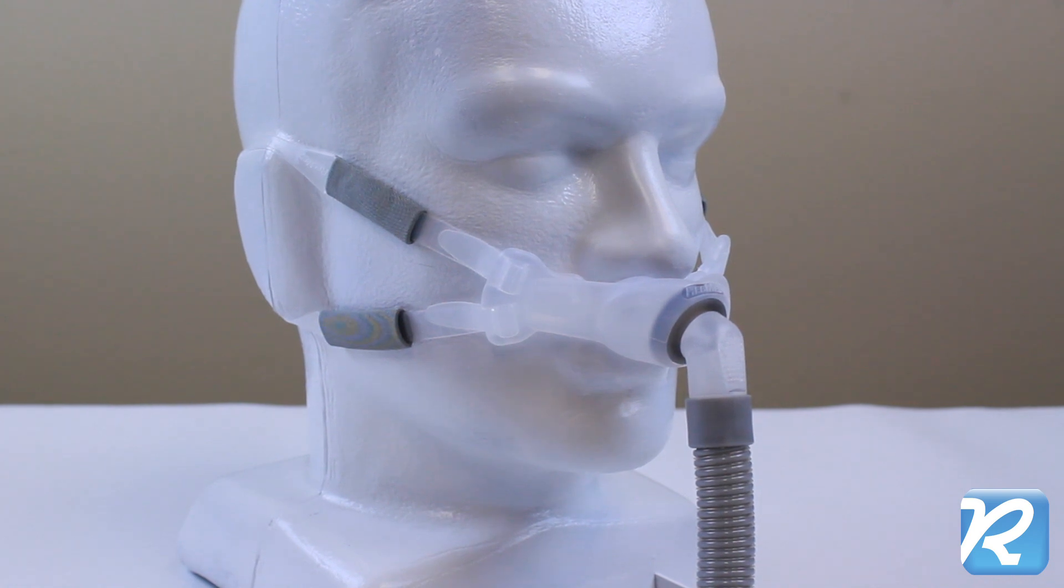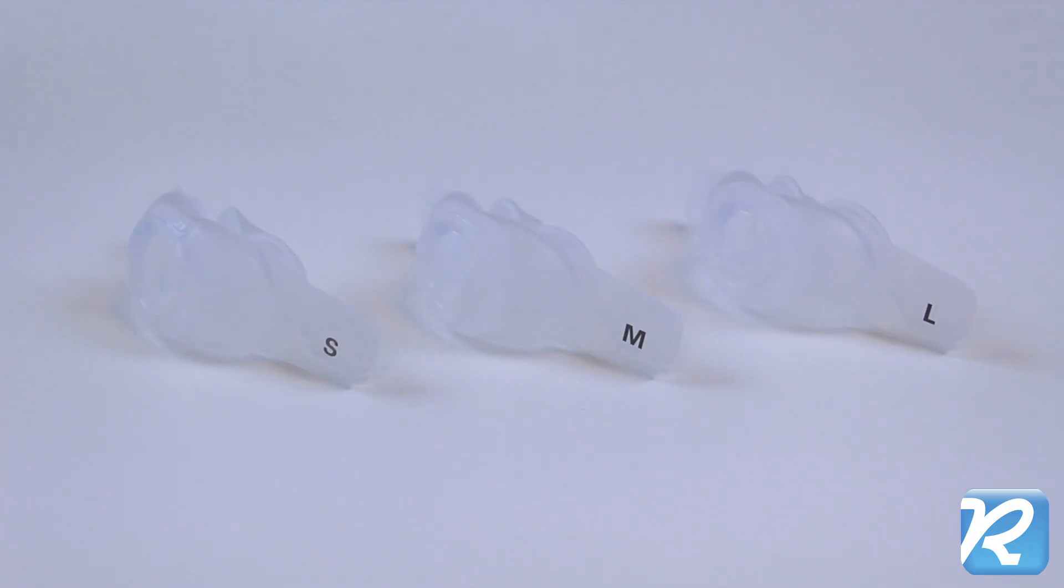The SwiftFX Bella Gray Nasal Pillow comes with three sizes of pillows: small, medium, and large.